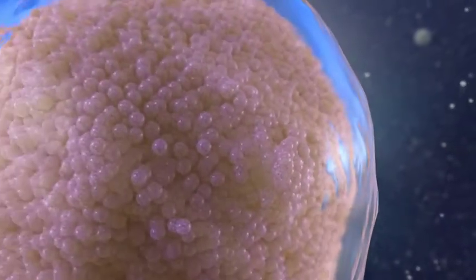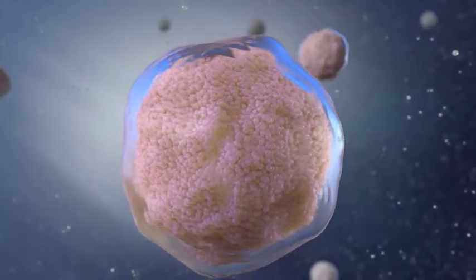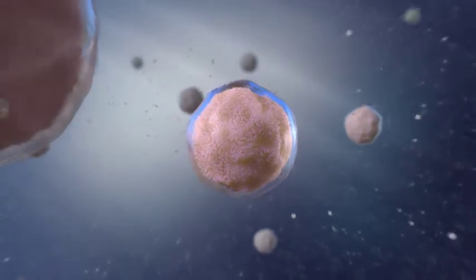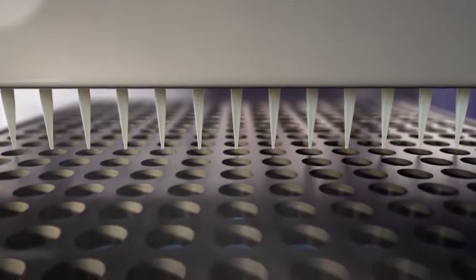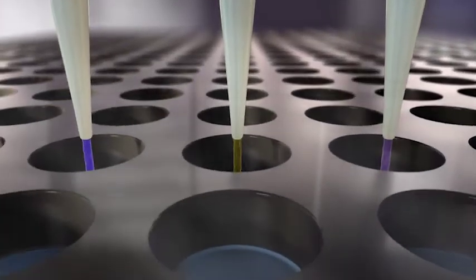These structures are called organoids, and they resemble miniature tumors. Being able to convert cells into organoids represents a powerful system for discovering the particular quirks of a person's cancer. Organoid structures allow greater accuracy in assessing the effect of various therapies and treatments.